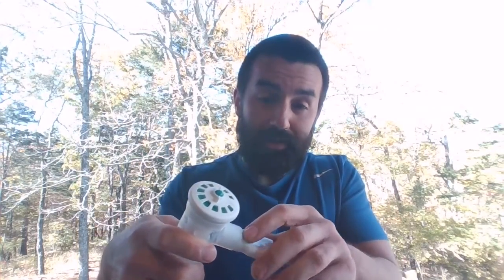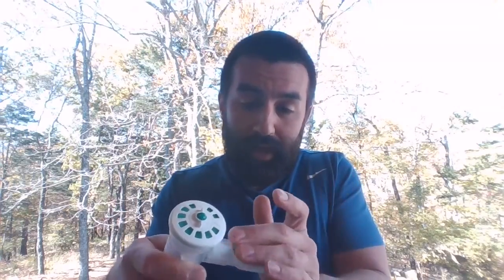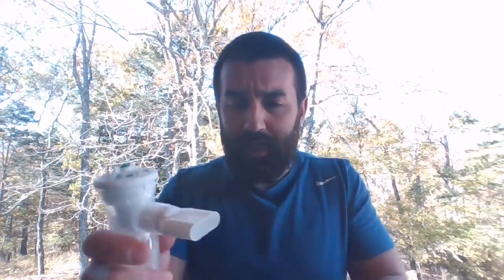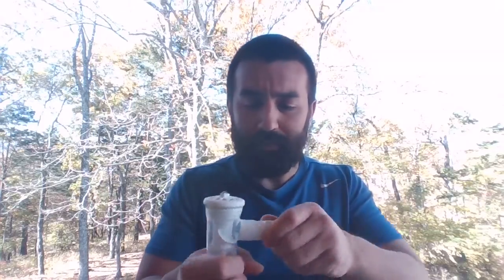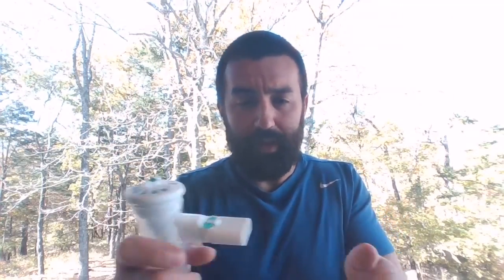It allows gas to leave on exhalation as I blow into it, and then when I breathe in, that little flap's going to close down. They come defaulted in the downward position, because you will get a little bit of residual medication dropping down. It doesn't have to be that way. You can have them going off the top, but it does drip, so that's kind of why it's set. Sometimes if patients are complaining about it dripping on their chin, you can flip it the other way here.